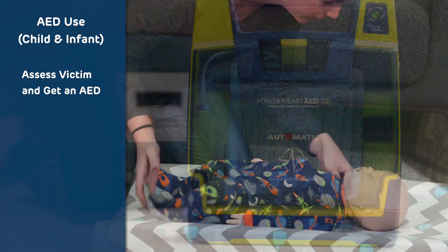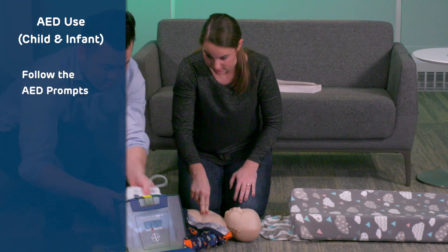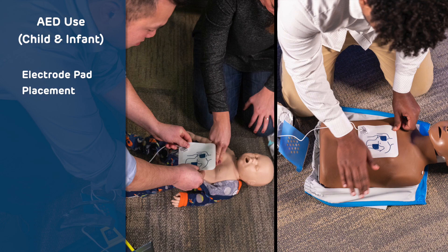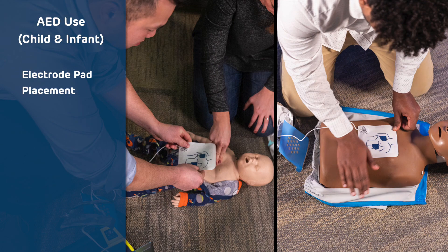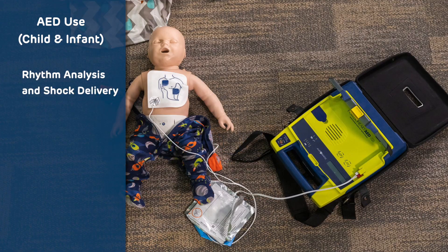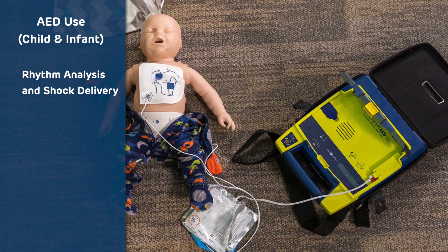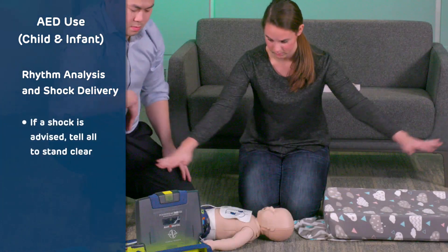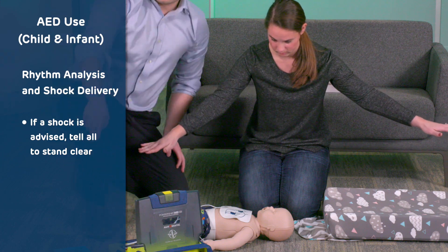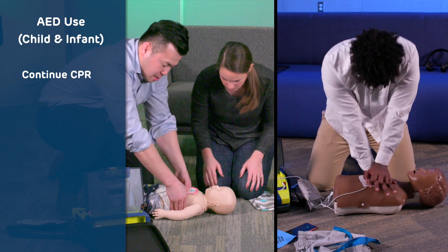Let's review the steps of using an AED on a child or infant. Assess the victim and get an AED. Next, follow the AED prompts. Then place the electrode pads on the anterior chest over the breastbone and on the center of the infant or child's back. Allow the AED to analyze the rhythm and advise shock delivery or not. If shock is advised, tell all to stand clear. Continue CPR with rescue breaths whether shock is delivered or not.